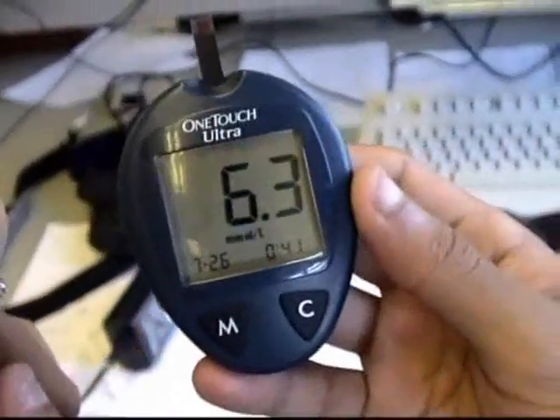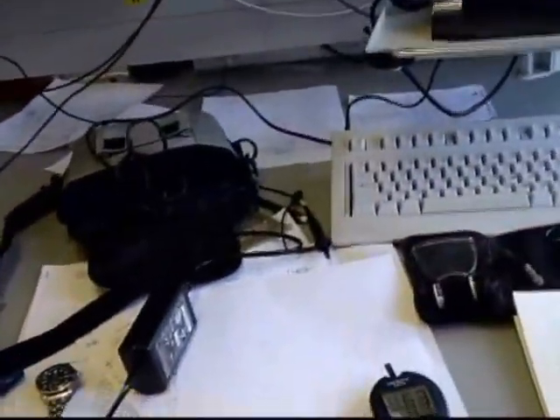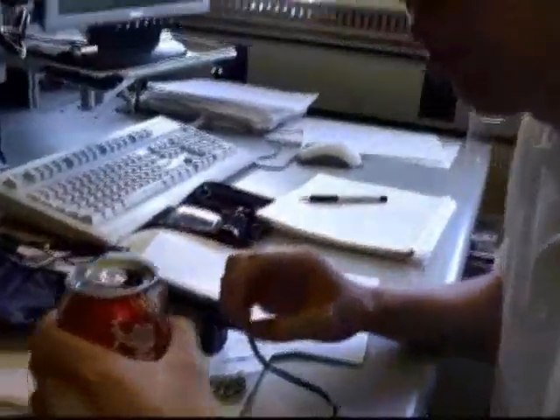It says 6.3 millimoles per liter at 3:35. Awesome. So now I have to drink the Coke within five minutes.